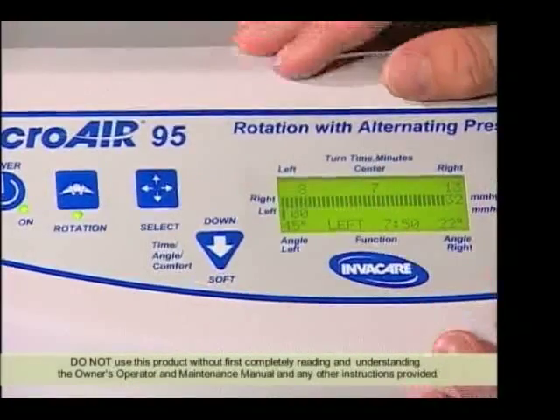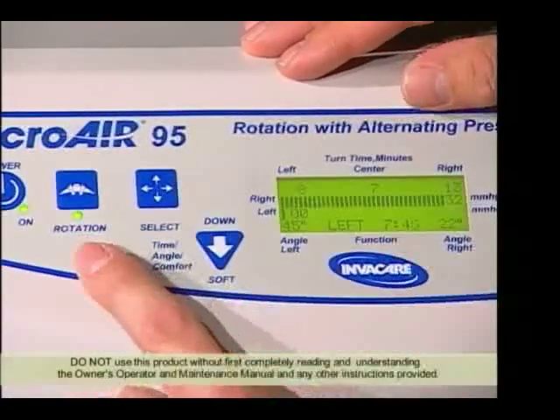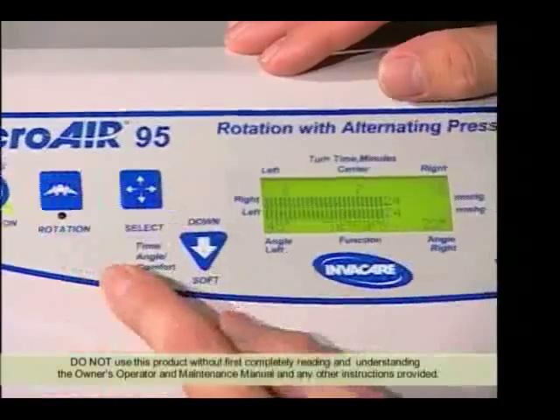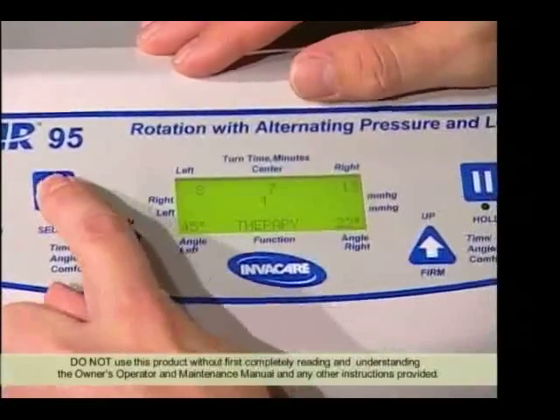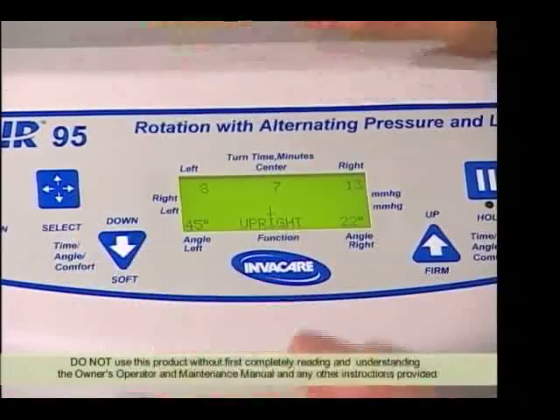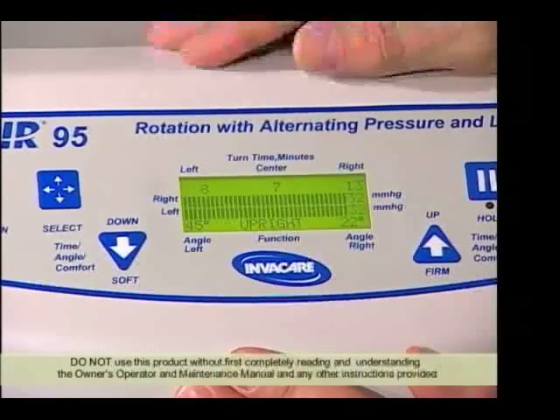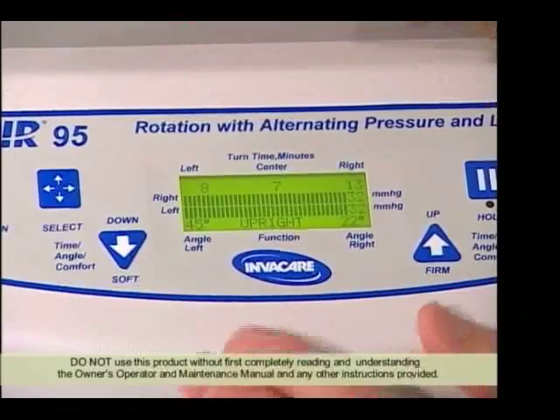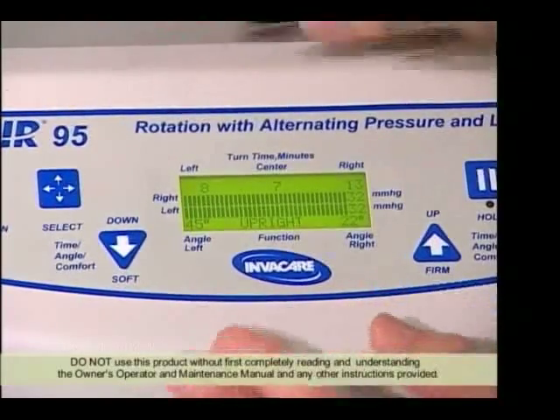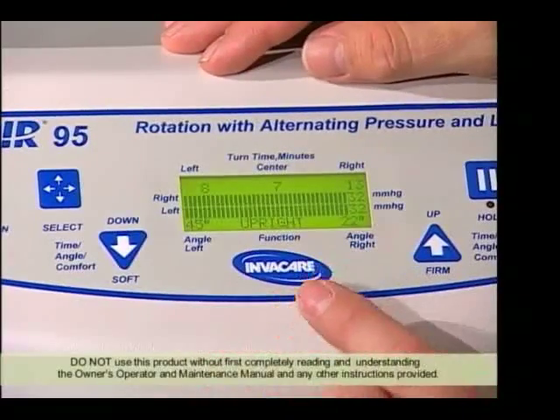If you are currently running in therapy mode and you want to go to another mode, you will need to press the rotation button to stop therapy and allow you to access other functions. Then press the select button five times to get to the function menu. One of the functions is upright, commonly known as Fowler. Although the MA-95 does have automatic wireless Fowler, which will tell the power unit to put 25% more air into the mattress as you raise the head, you can activate it manually by going to the upright function.